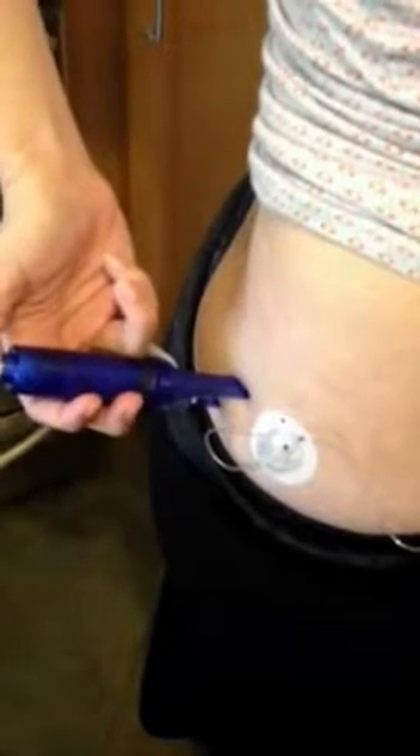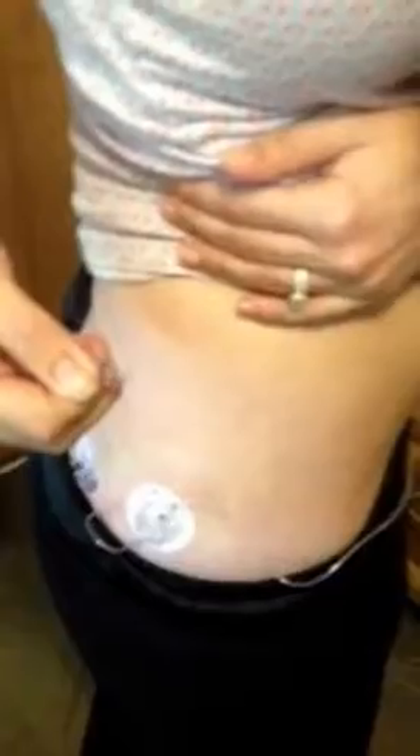We're going to take it and place it at a 45 to 60 degree angle — you can see it's at a slant. I'm going to go here and actually tilt it up just a little bit more. It's kind of hard to do this in this area because you have to really turn and be flexible. This is going to insert right in here — this is the part I hate. I'm going to hold this and pull away. I'm going to take this white tape and pull so that it sticks down. Then we've got to pull the needle out like we did before — I pull this out. There we go, that's what we just pulled out. Nice looking needle there.